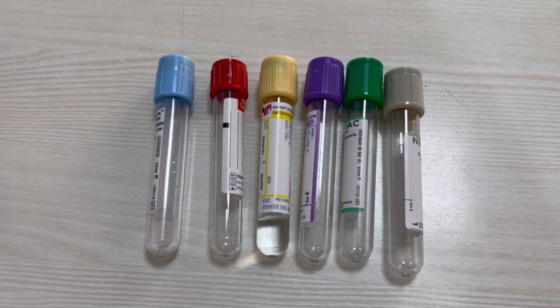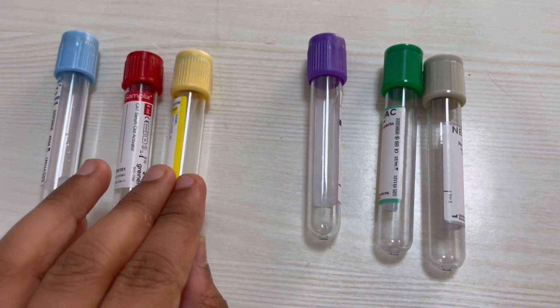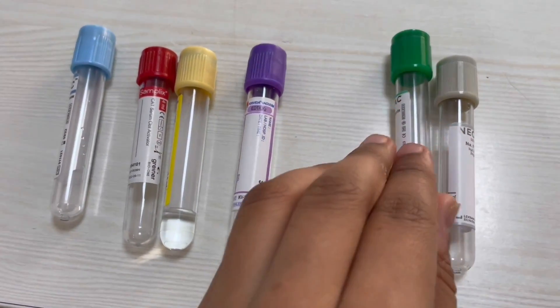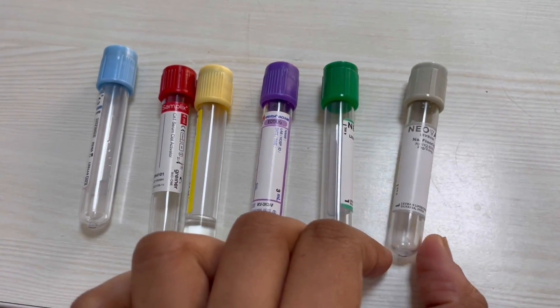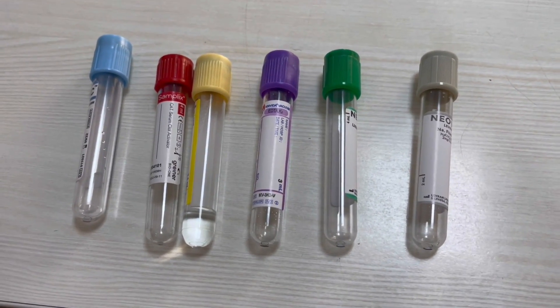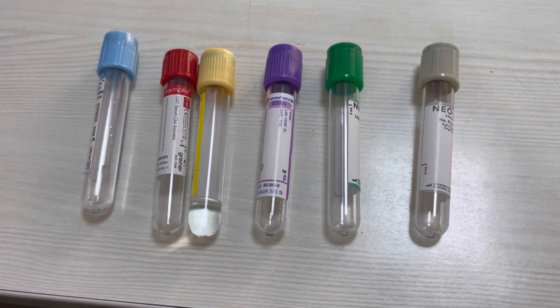The order of draw, if you have multiple investigations, is: start with the blue vacutainer for coagulation profile, then go for biochemistry investigations in the red or yellow vacutainer, then draw into the purple vacutainer for complete blood count, then the green for ABG and electrolytes, and last is the gray tube for blood sugar estimation. If you are told to draw blood cultures, that would be the very first in the order of draw, because blood cultures need to be as sterile as possible. A separate blood culture bottle is used for this.